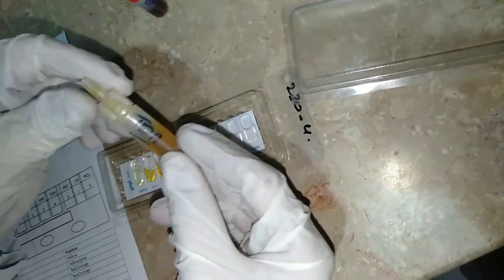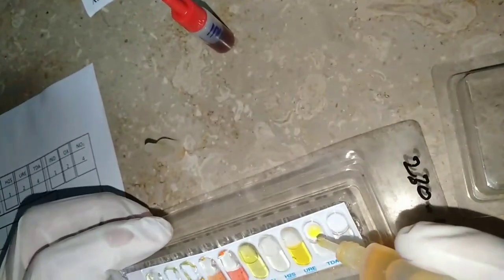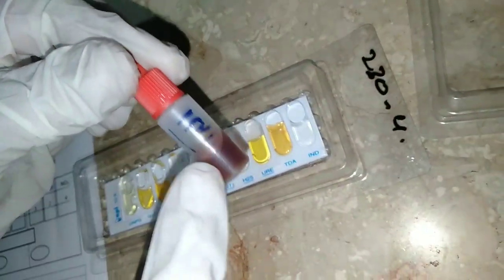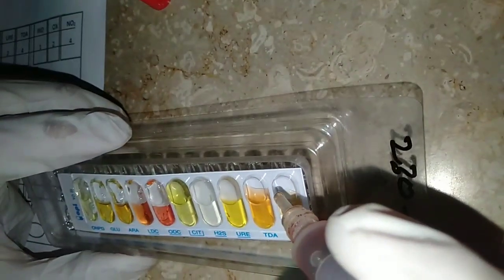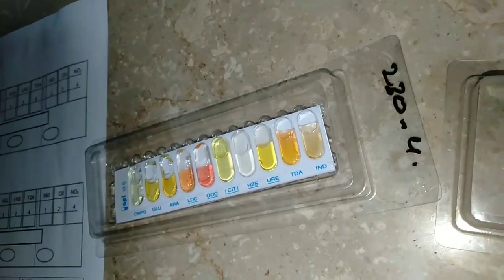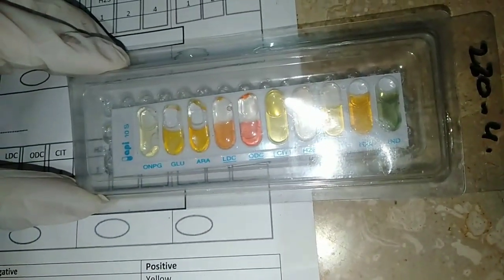After 24 hours of incubation we examine the strip. We note the color changes: tests that are positive we write positive, tests that are negative we write negative. First we add one drop of TDA reagent at the TDA well, then one drop of indole reagent at the indole well. For the glucose well we also add nitrate, which is really important. We wait two to three minutes, sometimes five minutes, before writing down the results.